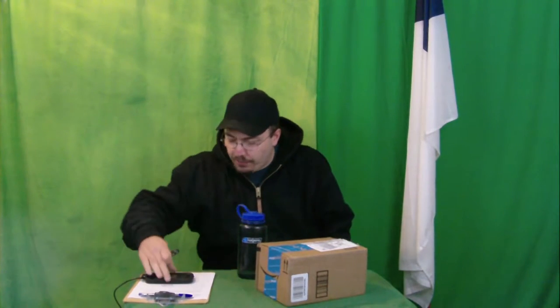Hello! My name is Justin Breidoff. I'm here today to talk to you about another episode of Justin's Epic, Amazing, Awesome Reviews. And we have the Easy at Home Digital Upper Arm Blood Pressure Monitor.